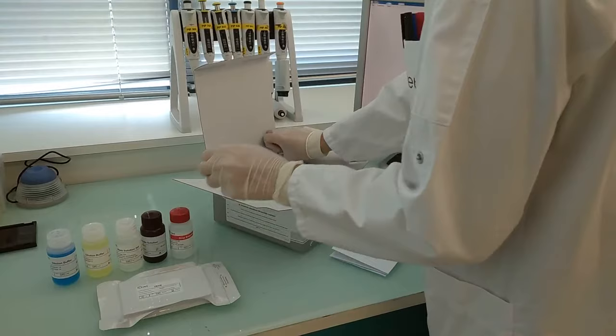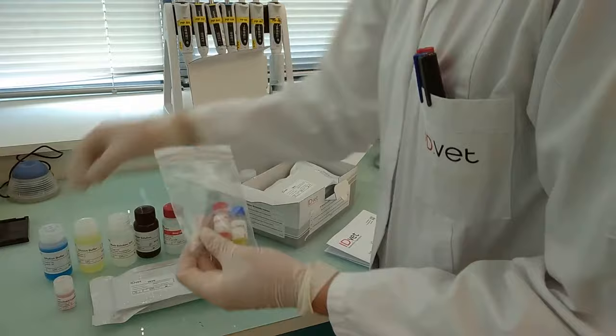The kit also includes a concentrated conjugate and positive and negative controls.